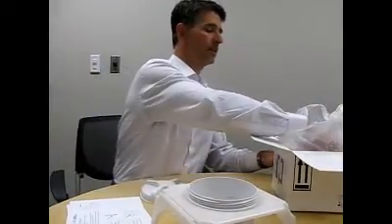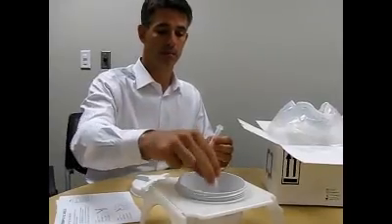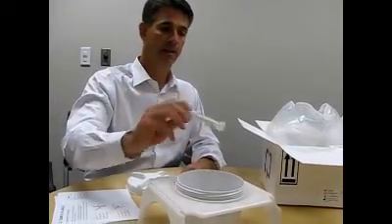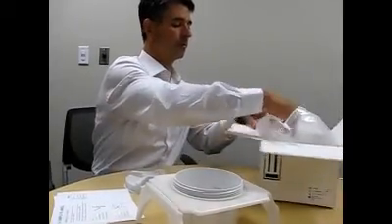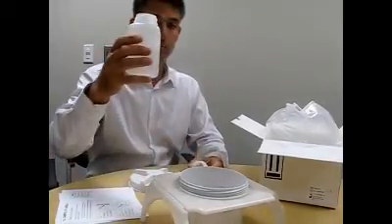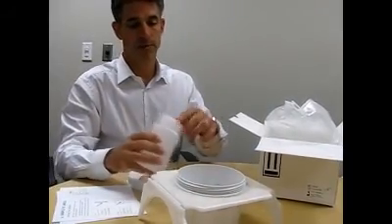After providing a sample, we need to collect a separate, very small sample to test for blood in the patient's sample. You simply take a small sample and put it into this vial, then take this vial and put it back into the box. After doing that, the patient simply takes this preservative and pours it over the sample and throws away the empty vial.